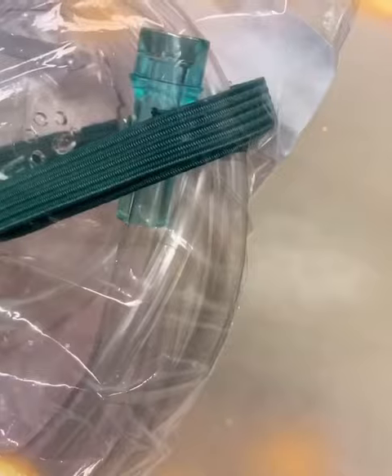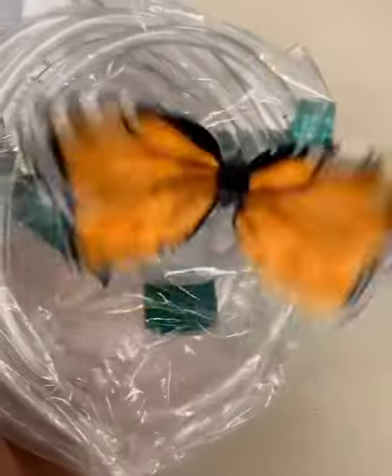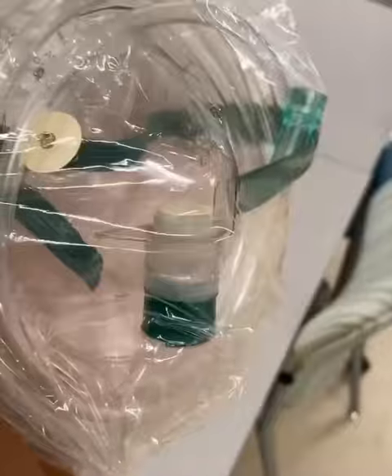This is the connection that goes to the flow meter, 8 to 15 liters per minute. They get about 80 to 90 percent oxygen with this delivery device system. Pediatric non-rebreather.